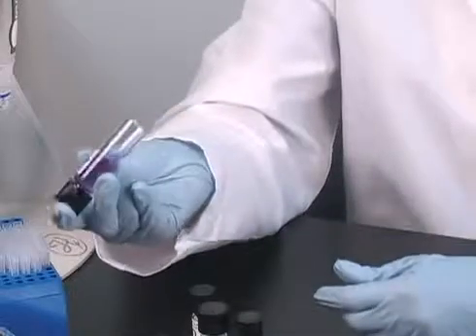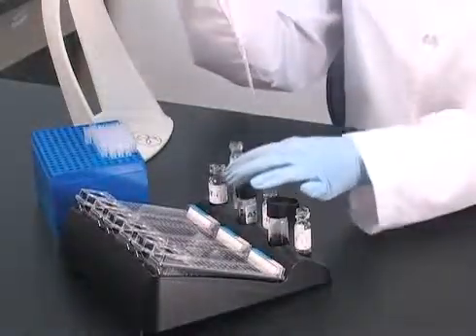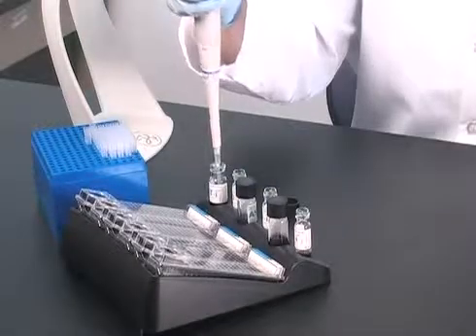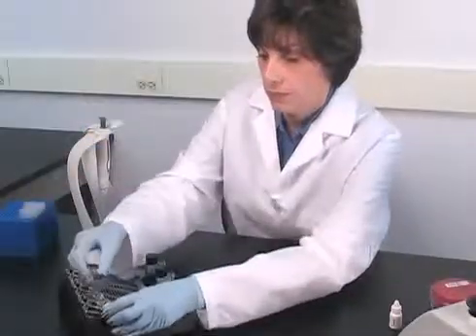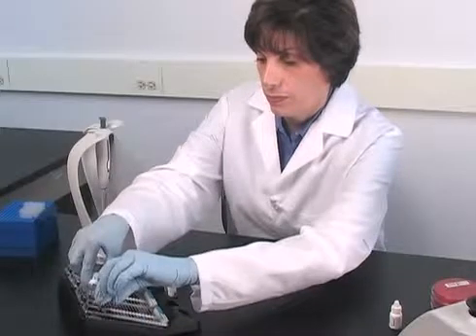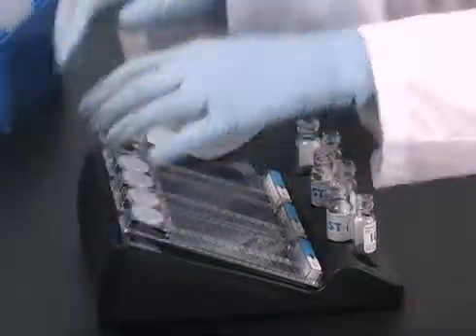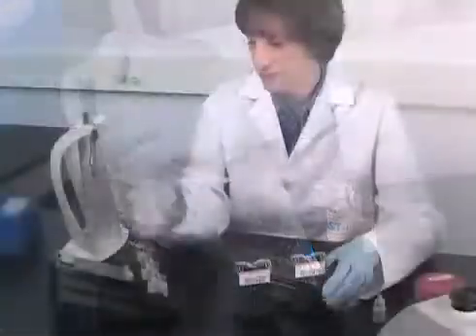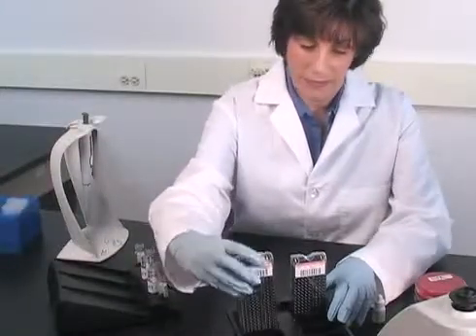Simply pour each tube into the panel, cap the inoculation ports, and label the panel with either patient information or a session barcode label.